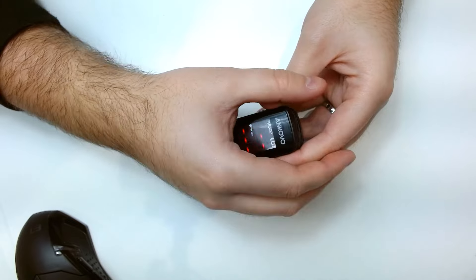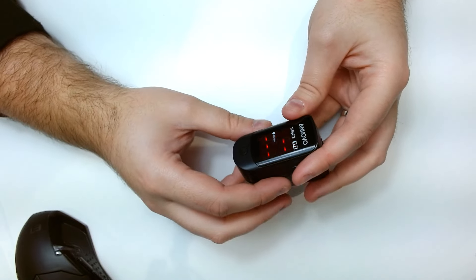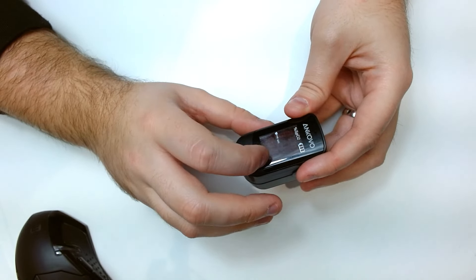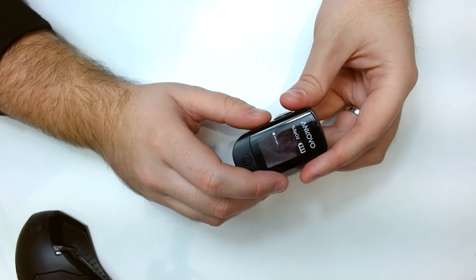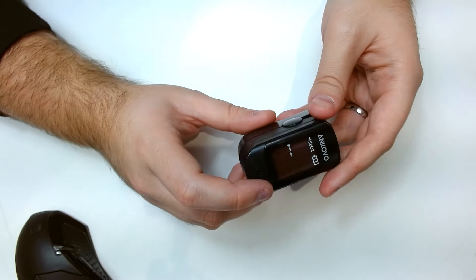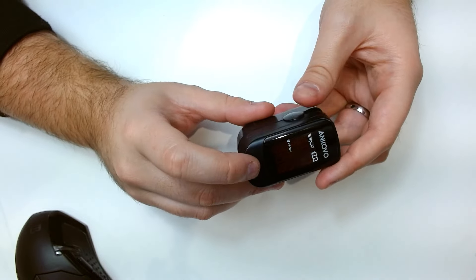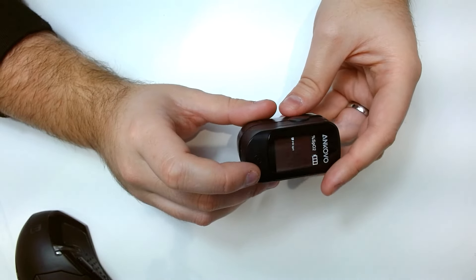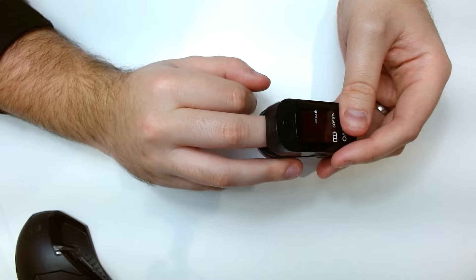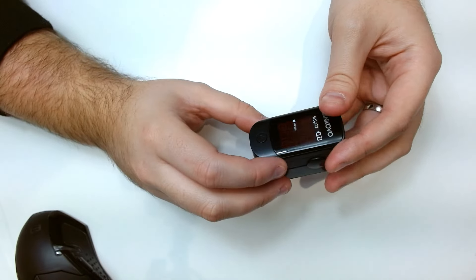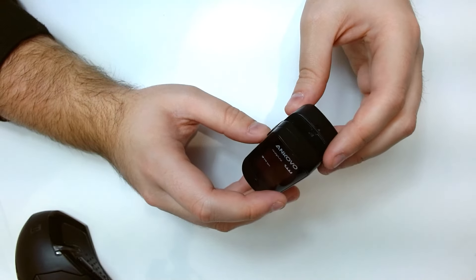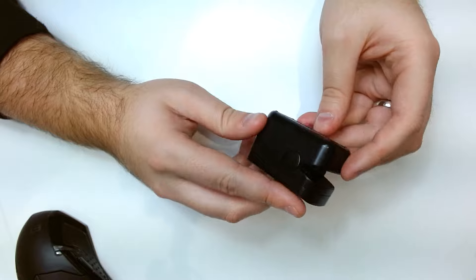Can we see it? No, okay. I'm just trying to get that flickering for you but it's just an effect by the camera. It turns off automatically so once your finger's out of it and you've not clicked this button, about 10 to 15 seconds and it turns off.